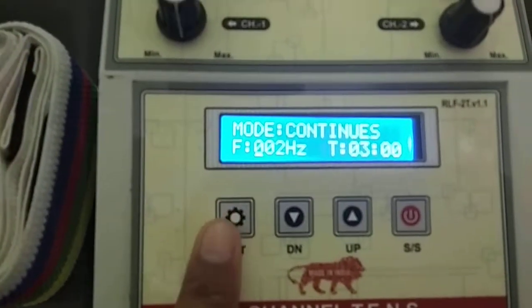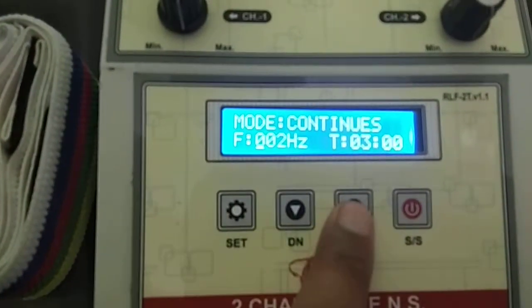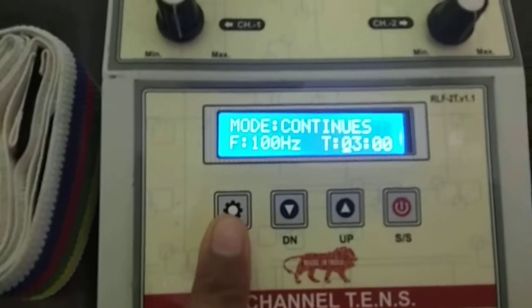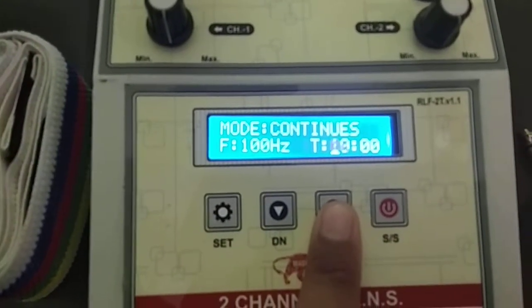Then I press this setting key again. Now came to frequency. So I set up frequency 100 hertz and treatment time 10 minutes.